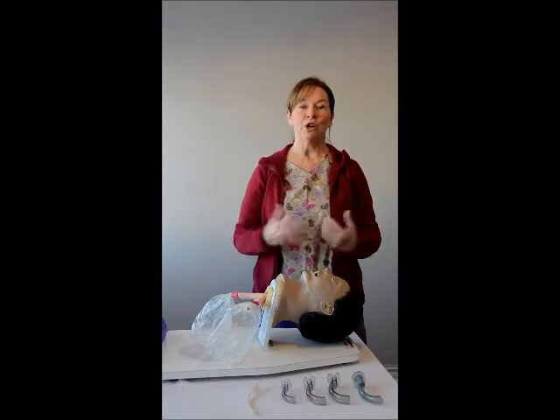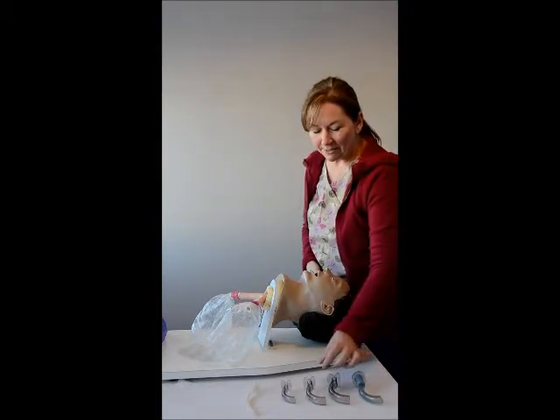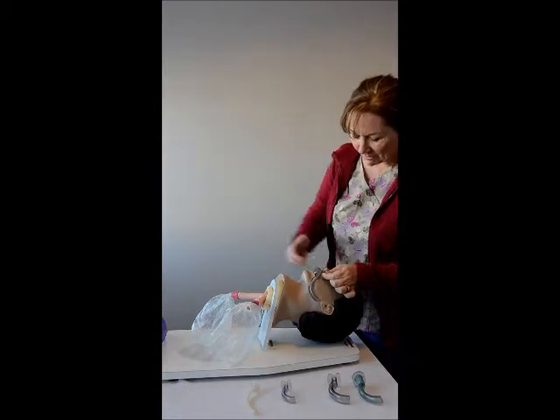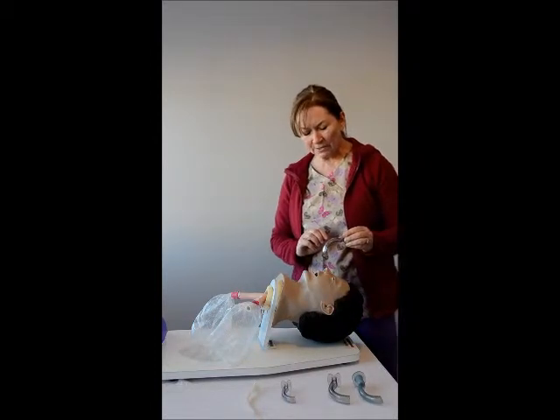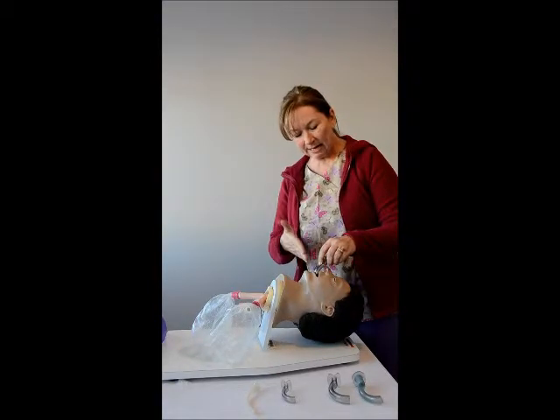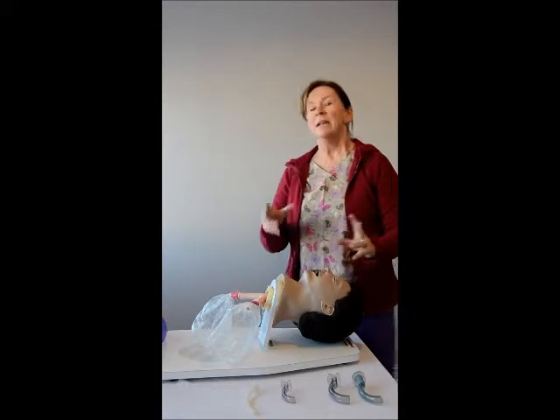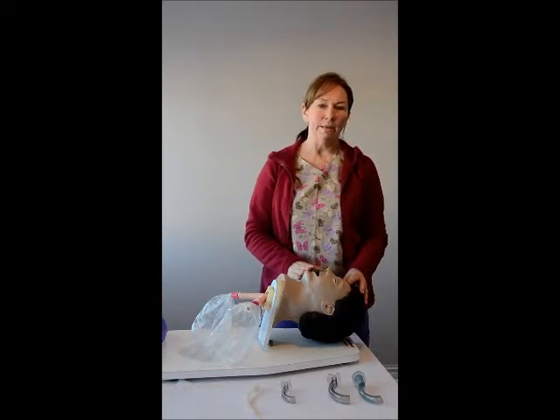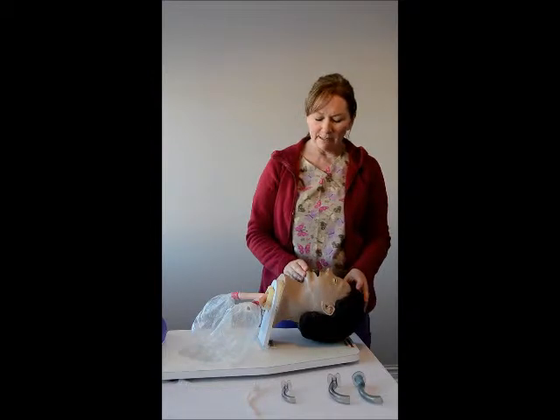Please remember in real life to don your gloves. When looking at oral airways, we have a few different sizes. The size you decide upon is based on the measurement from the angle of the mandible to the entrance of the mouth. When inserting the oral airway, you insert it halfway upside down, then turn it and continue to advance. You don't want to push the tongue down, and you need to ensure the size is not too big or too small so it doesn't cause the tongue to be an obstruction.